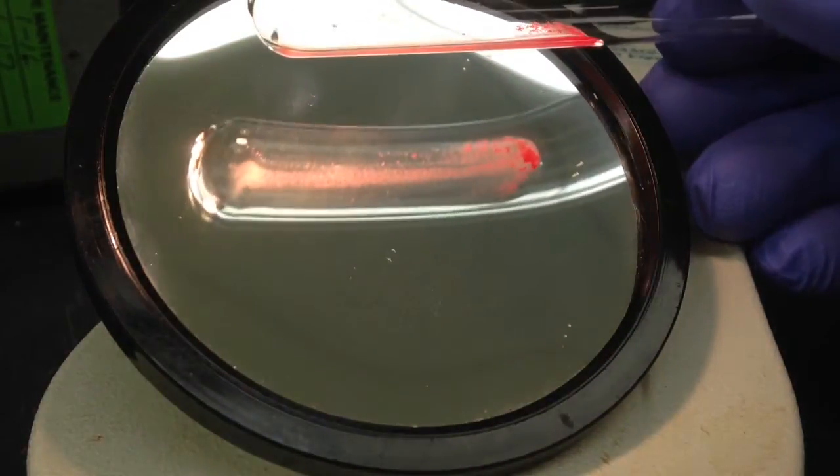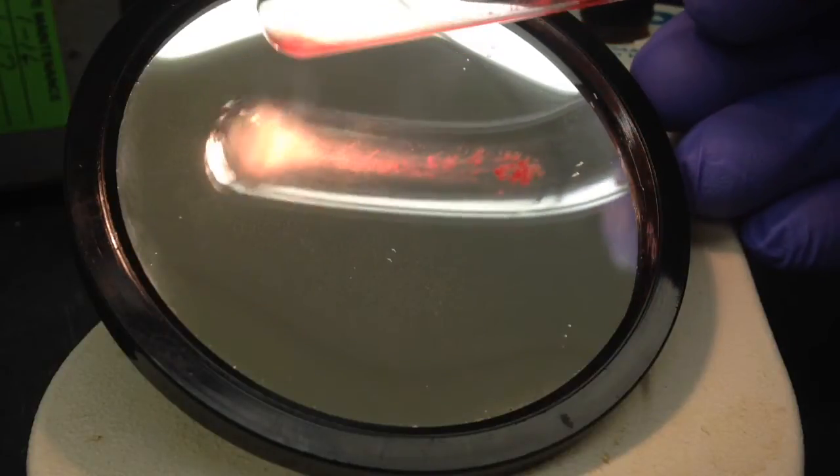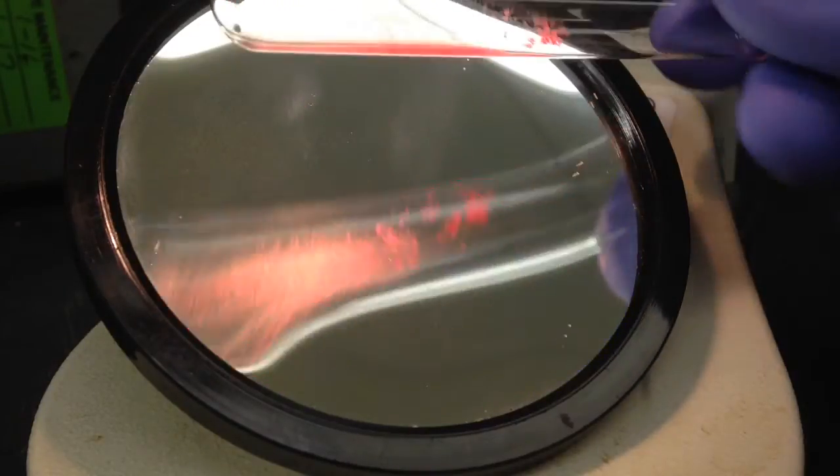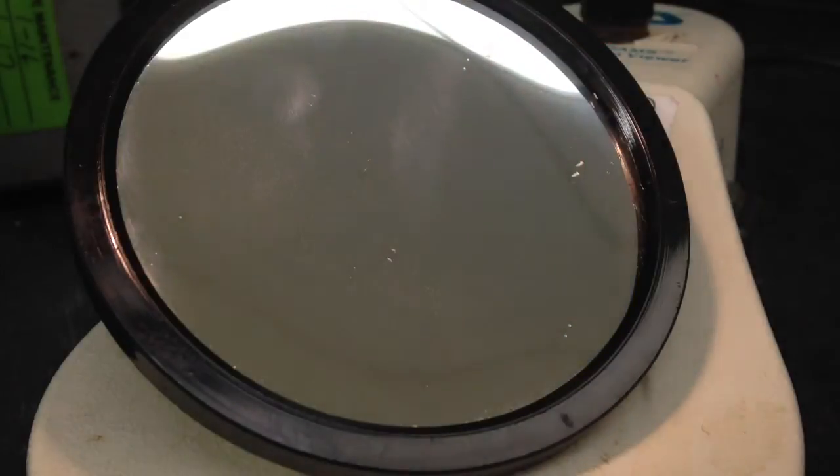And then a 1+ in comparison will be a lot of tiny agglutinations. As you can see there, there's quite a few of them, but they're all relatively small.